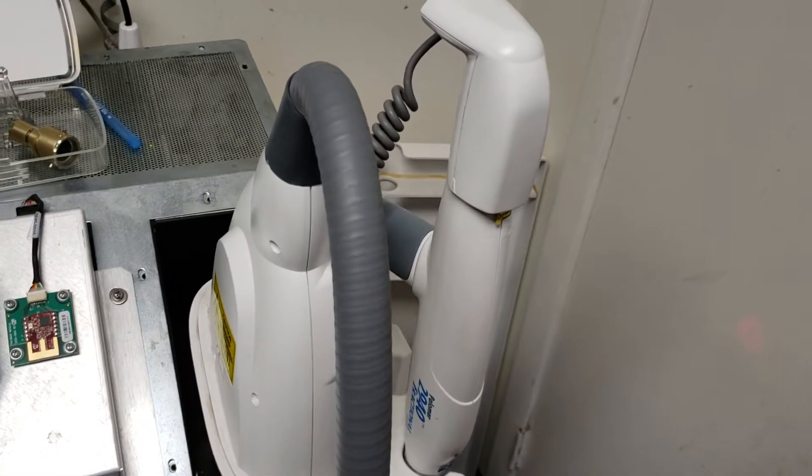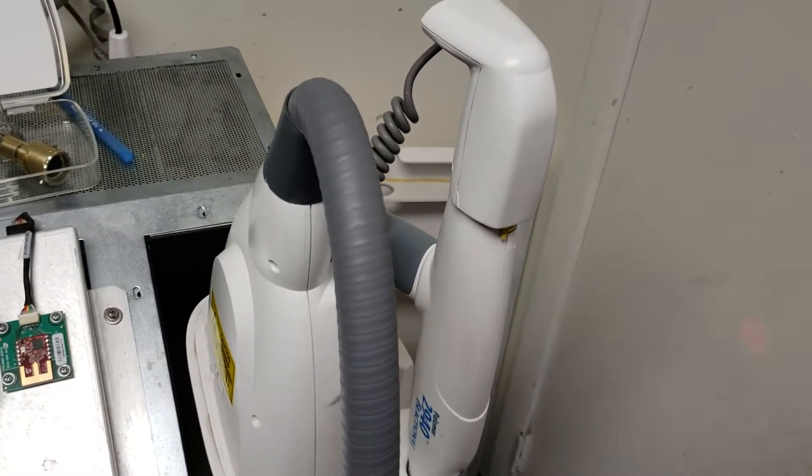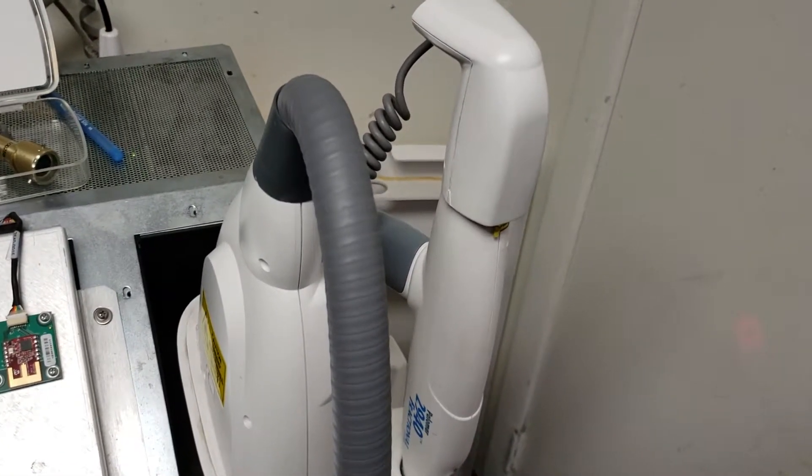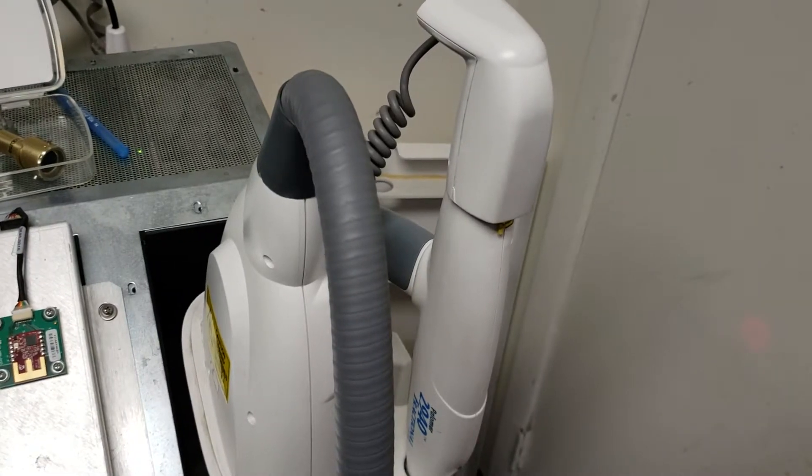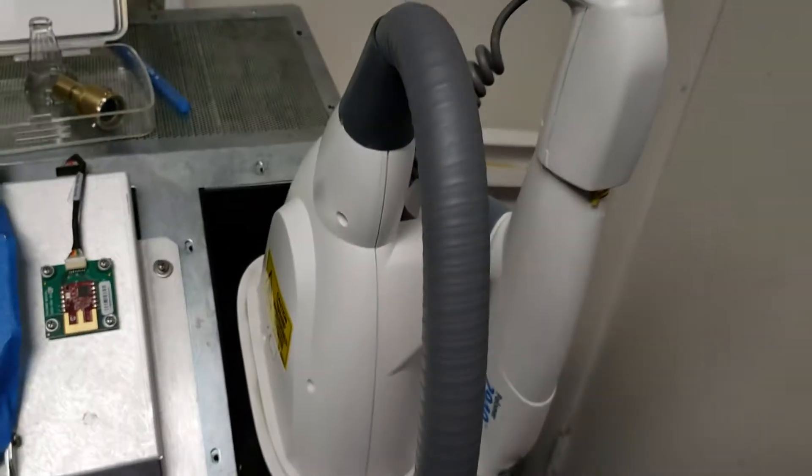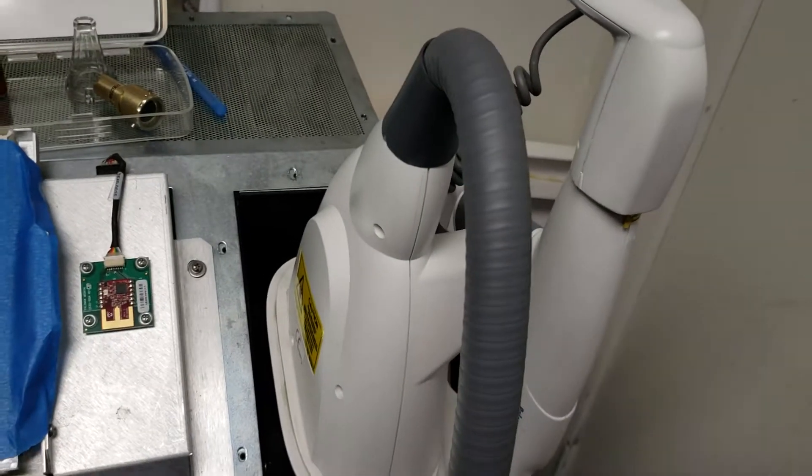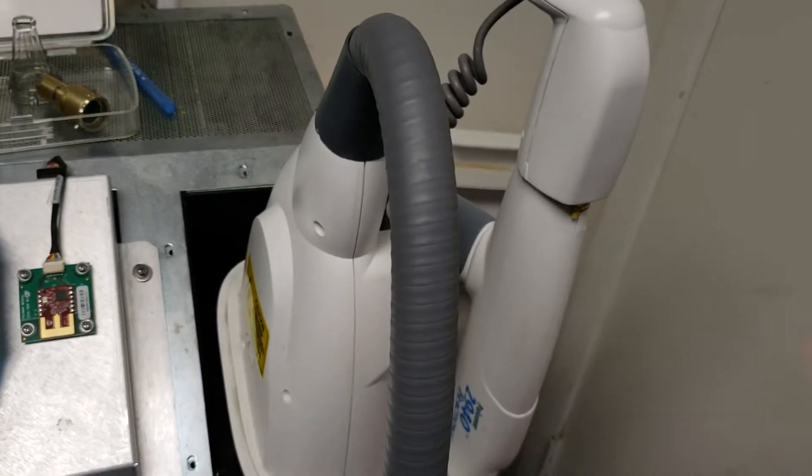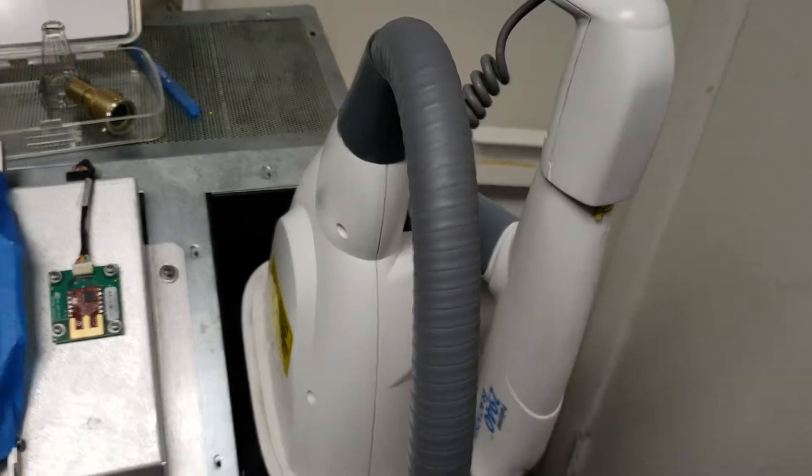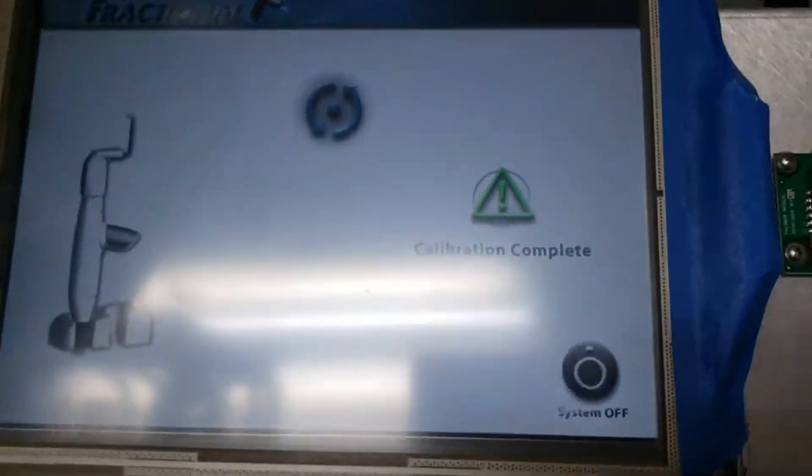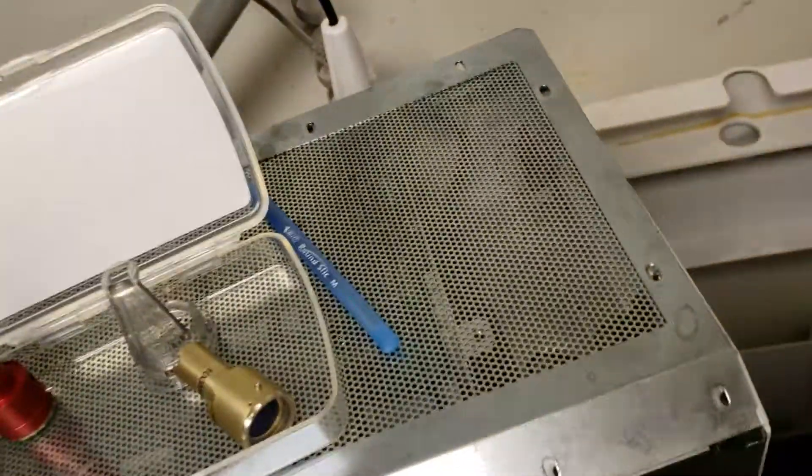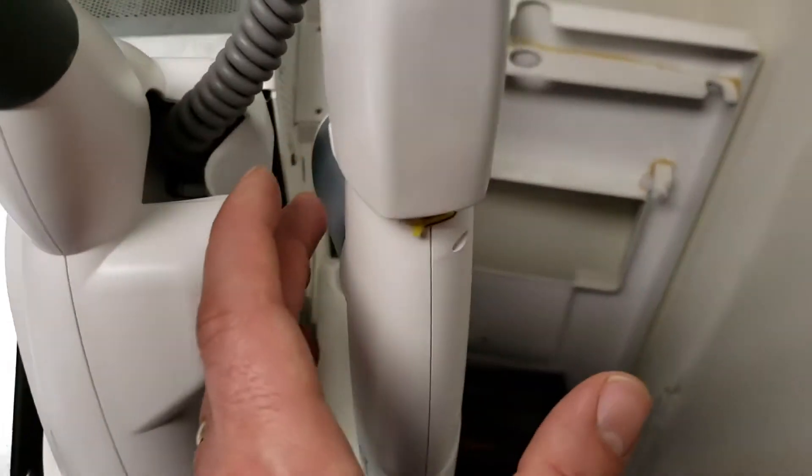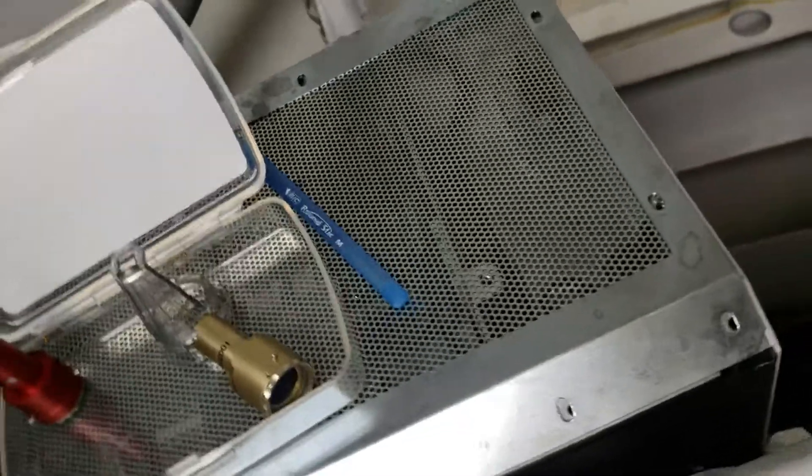You're going to hear the pulses—fast pulses, short pulses. After passing calibration, you turn this very slowly.